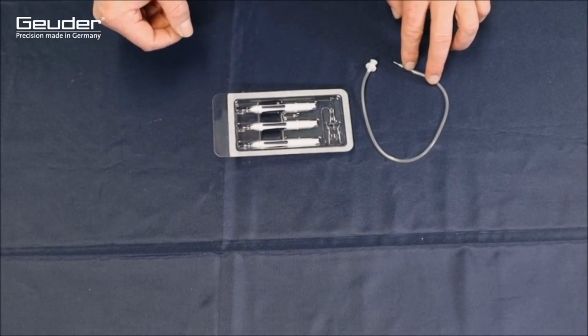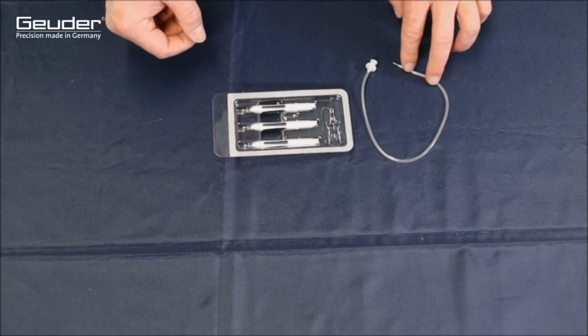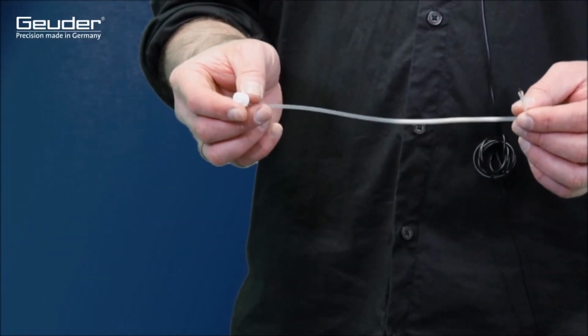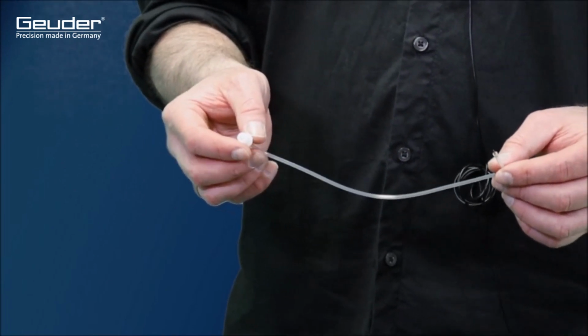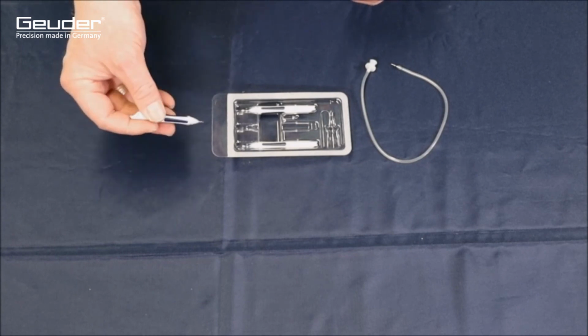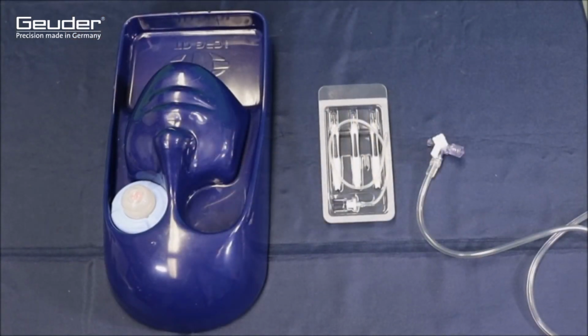Finally, a third trocar port is provided for connecting the injection holder contained in the trocar set. The injection holder conveys the desired medium, here BSS or air. The required medium is selected via the position of the three-way valve and can be adapted to the surgical situation intraoperatively. Using an artificial eye as an example, the insertion of the trocars will now be demonstrated.